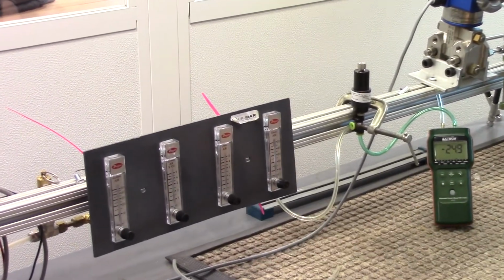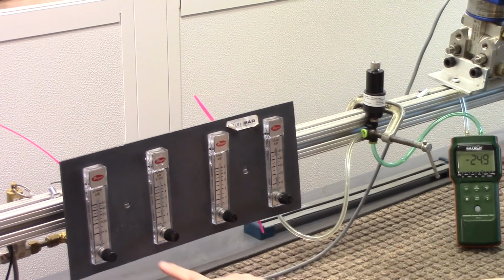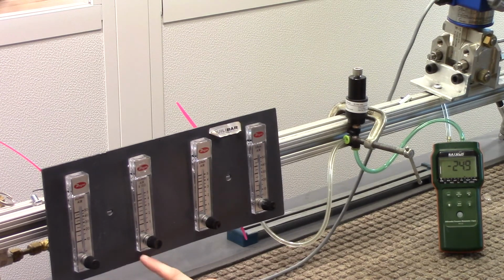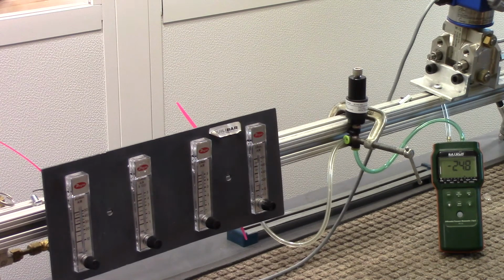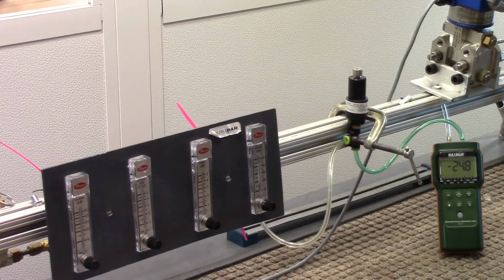And we have this bank of rotometers. We are only going to evaluate this rotometer and this rotometer, which this one on the left is cc's per minute of air volumetric flow, and the one on the right is representing flow in liters per minute. So we've kind of balanced the system here at 1 liter a minute and roughly 25 millibar of set point. This represents typical peak pressures for PIP set points.